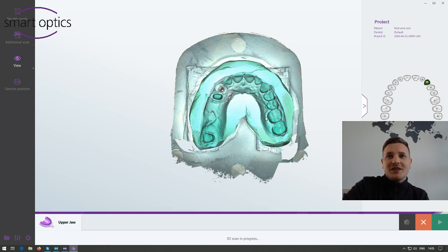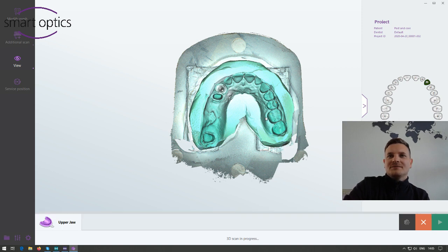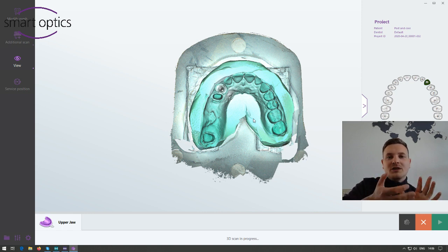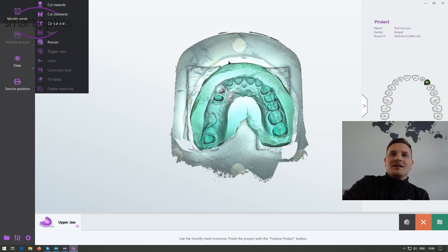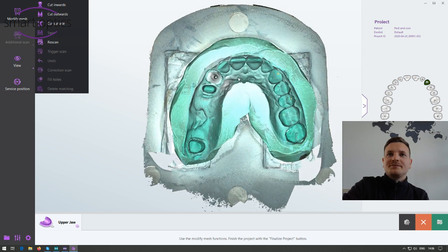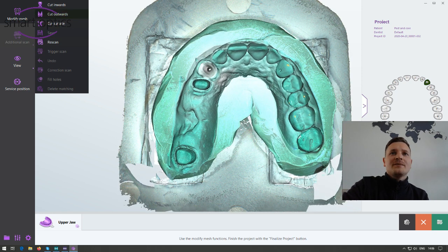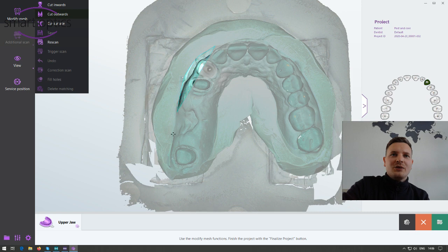The scan looks good and will be finished soon. Now we should start with the cutting after all files are loaded in the viewer. I choose a view from the top and take the cut outwards function. Now it's the new lasso cutting — just hold the left mouse key pressed and move around the areas you want to cut away.